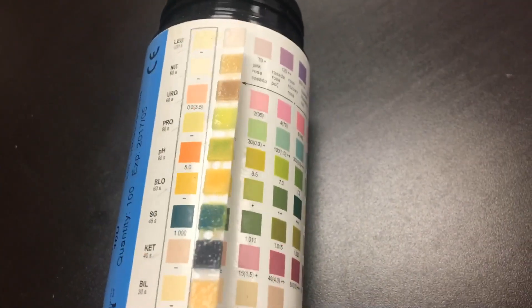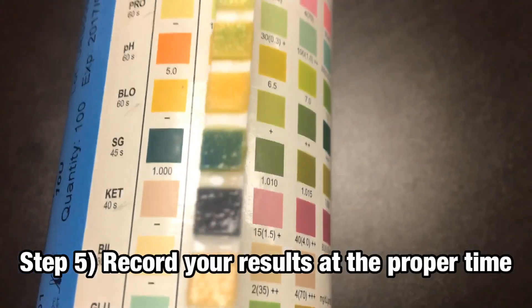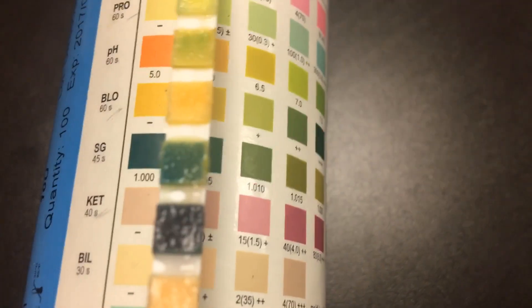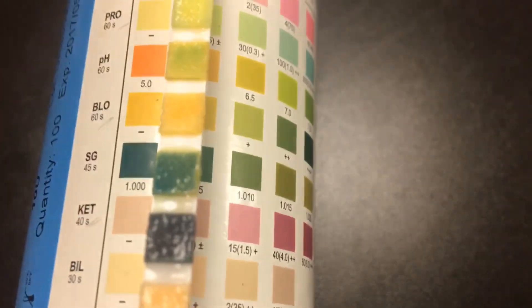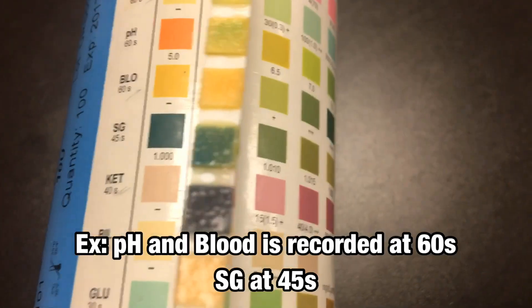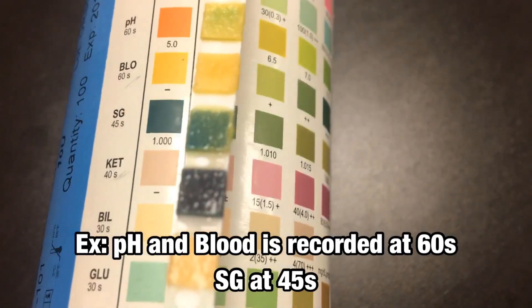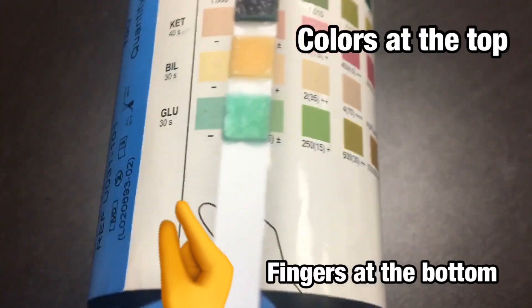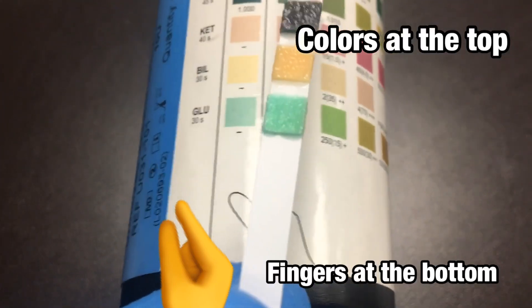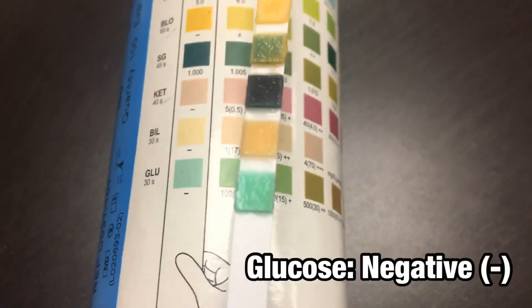Be careful because each one has a different time. For example, pH and blood you're going to measure at 60 seconds, but specific gravity you measure at 45 seconds. Just looking down here at glucose — it's water, so there's no glucose in water. That would be a negative test.